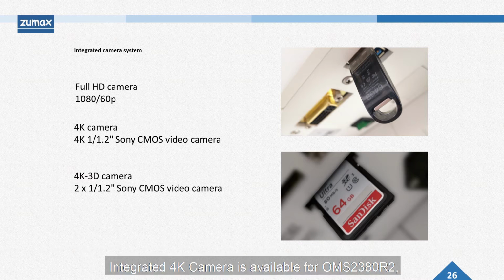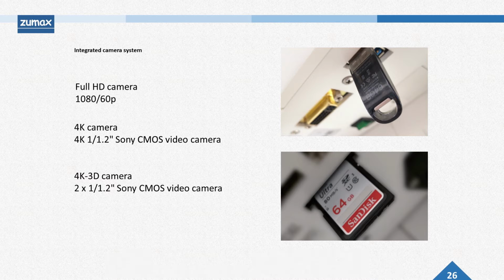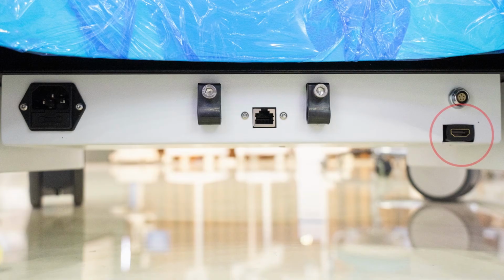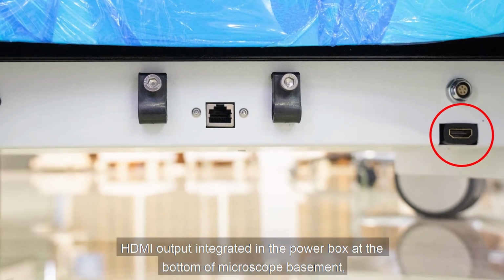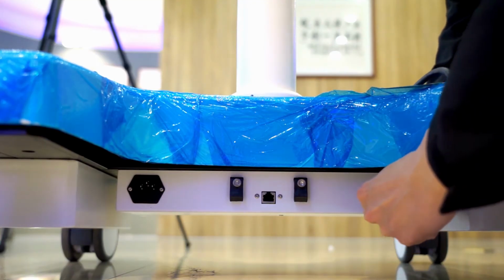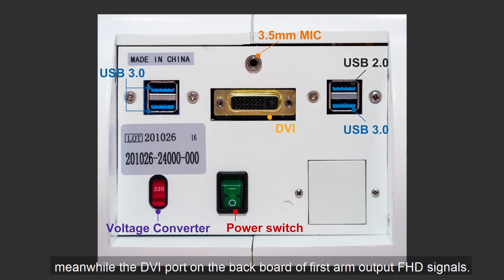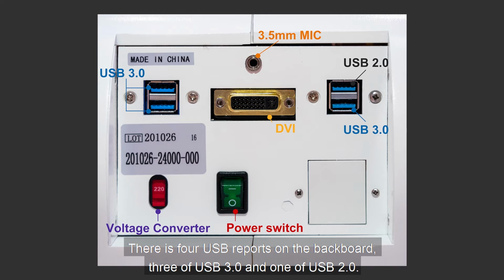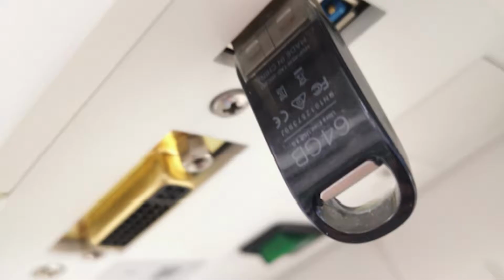Integrated 4K camera is available for OMS 2380R2, OMS 3200R2 and Pro. HDMI output is integrated in the power box at the bottom of the microscope base. Meanwhile, the DVI port on the backboard of the first arm outputs FHD signals. There are 4 USB ports on the backboard, 3 of USB 3.0 and 1 of USB 2.0.